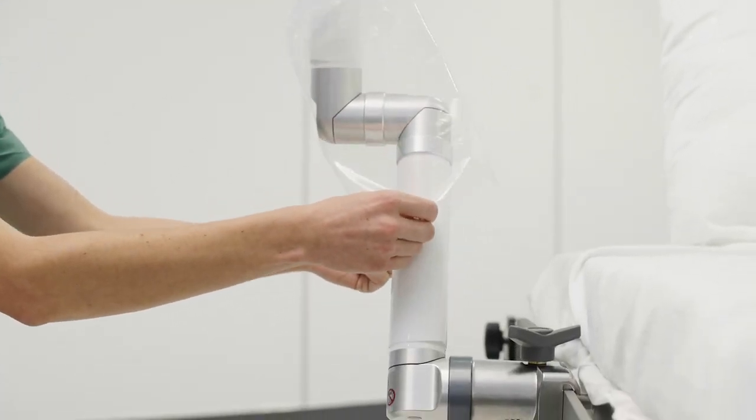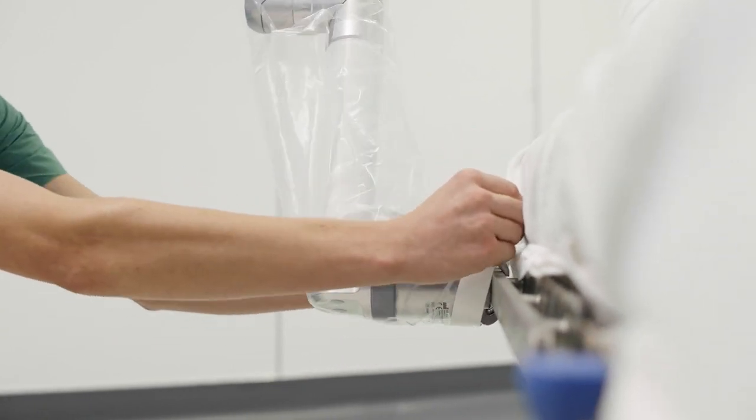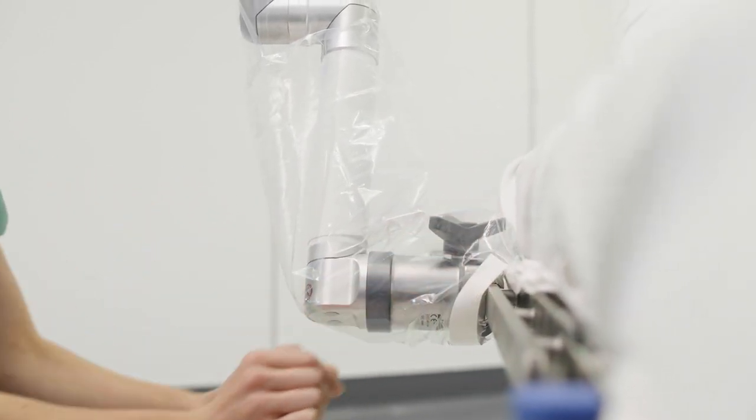Ensure that the non-sterile area is completely covered by the sterile sheath. The non-sterile end should be appropriately covered during sterile draping.